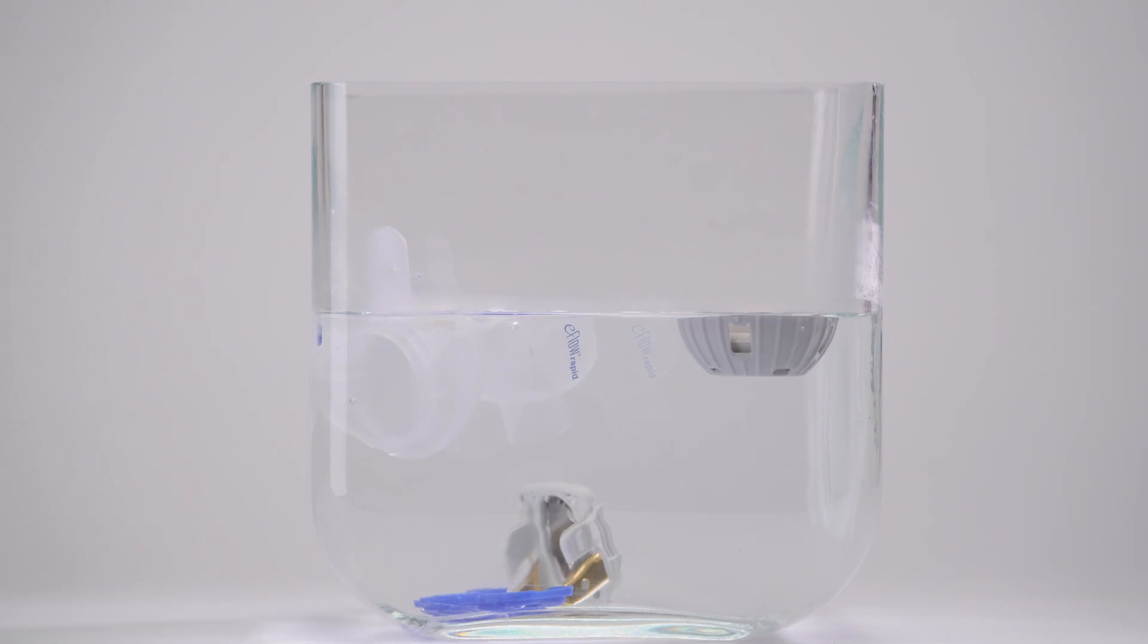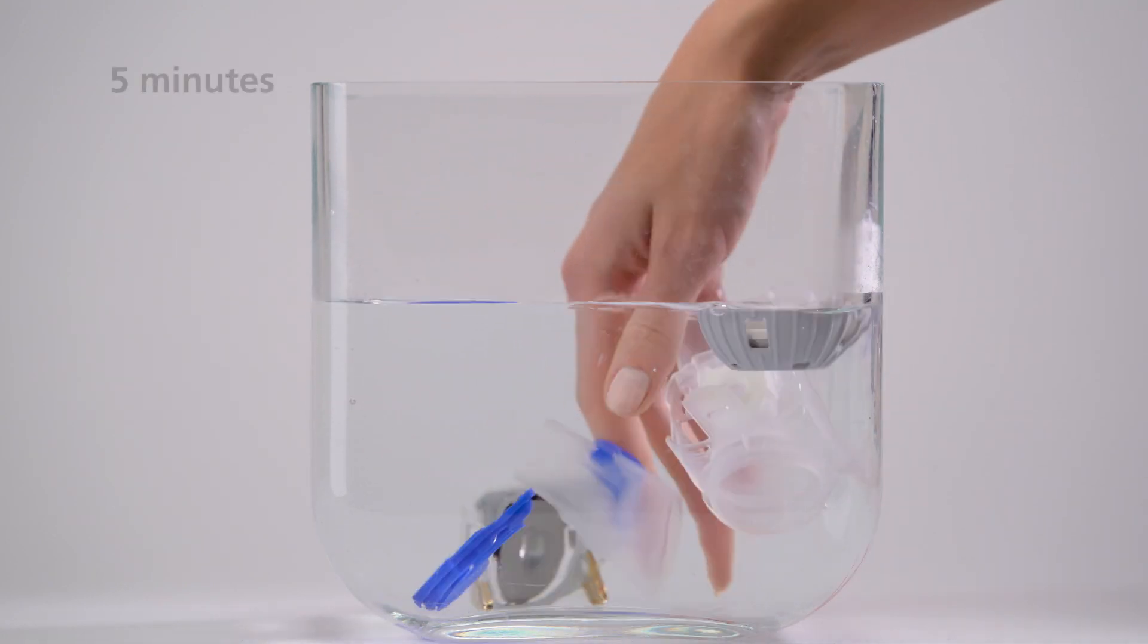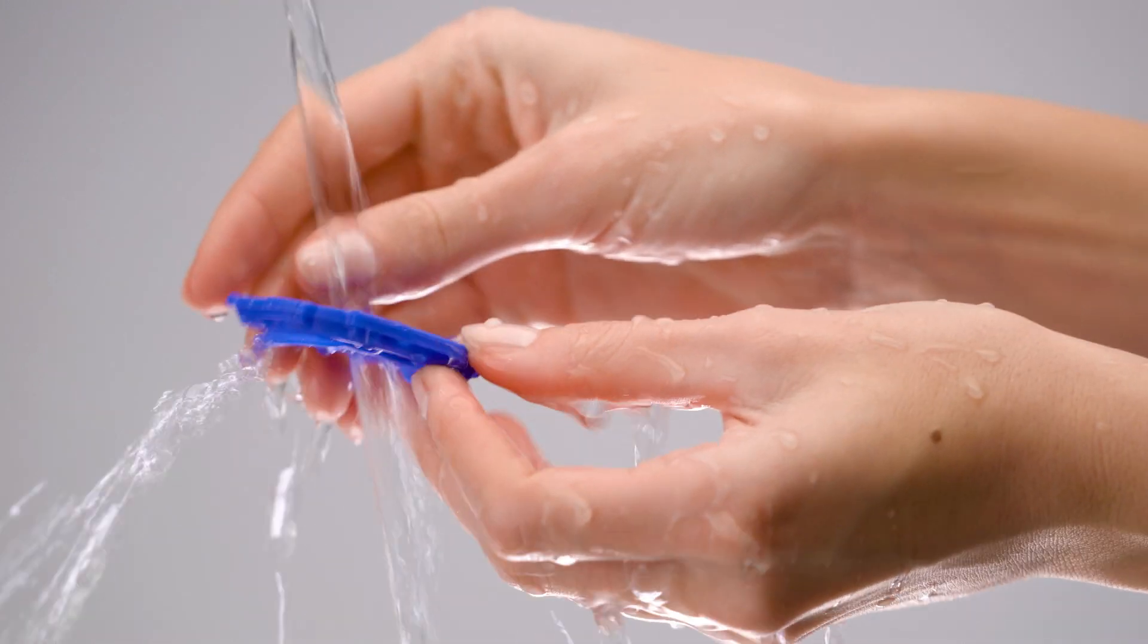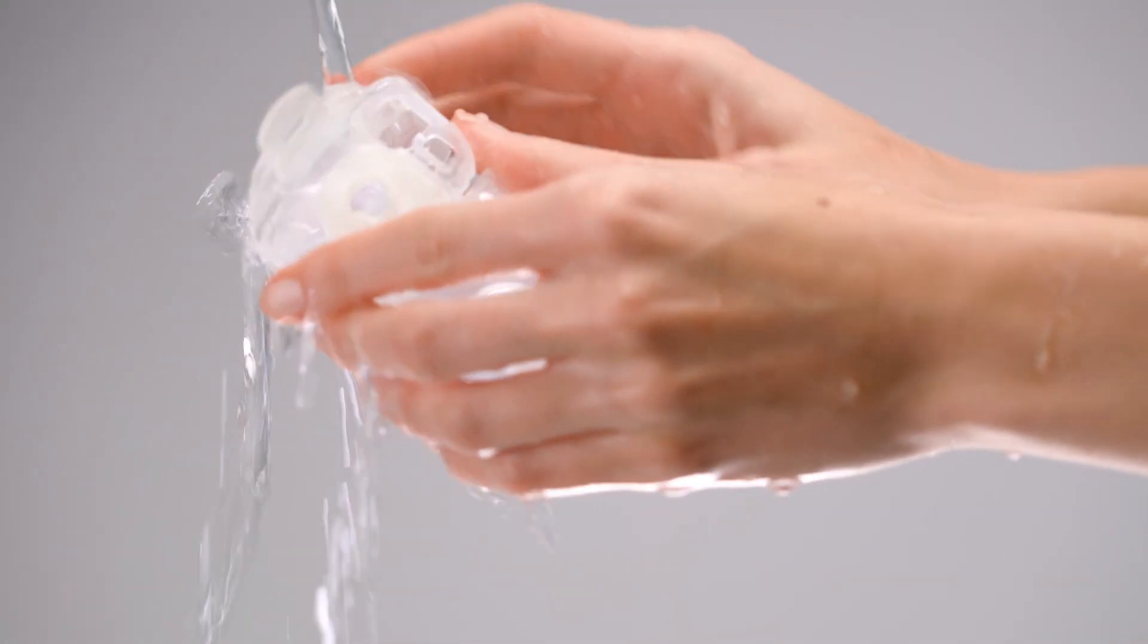Place all individual parts in warm tap water with clear washing up liquid for five minutes. Then rinse thoroughly in running water.